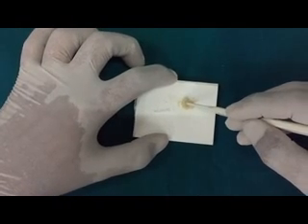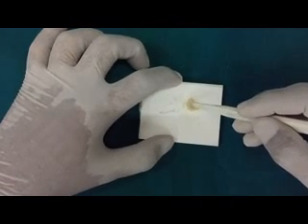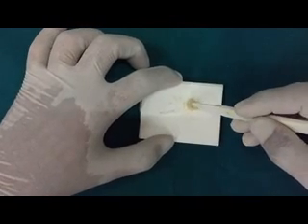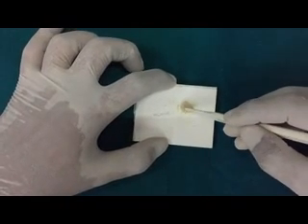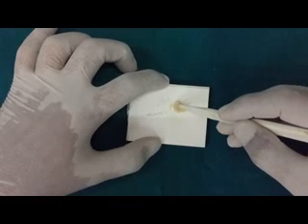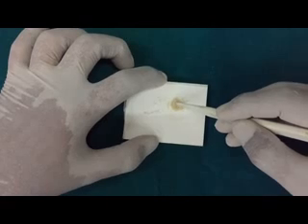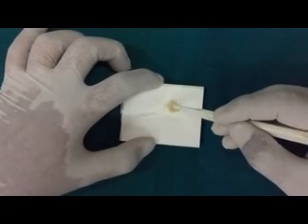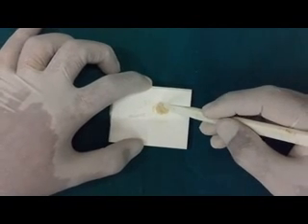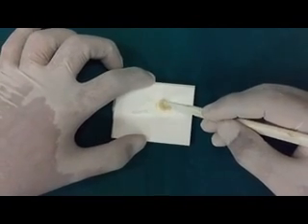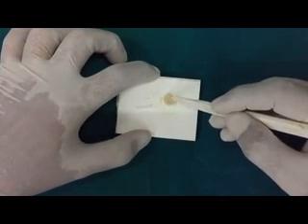This problem has been bypassed in the newer materials of the resin modified version of the glass ionomer cement. The resin modified materials have light cured ability and set immediately as soon as the light is applied on the restoration. The resin matrix sets and allows the glass ionomer reaction which is a self setting reaction to continue within the matrix of the resin. This prevents the loss of water or contamination of water during the cement setting phase.